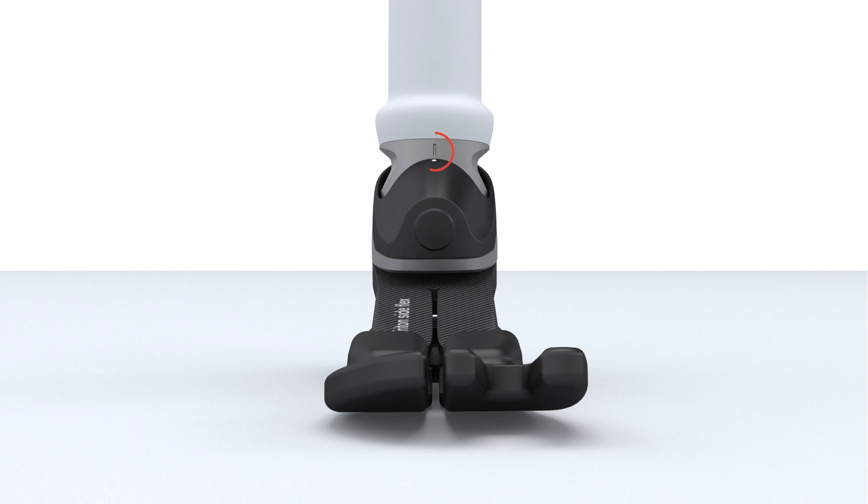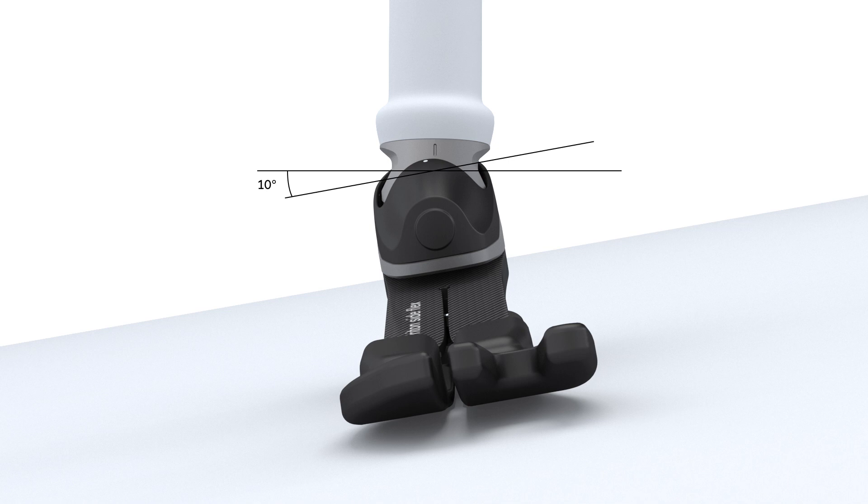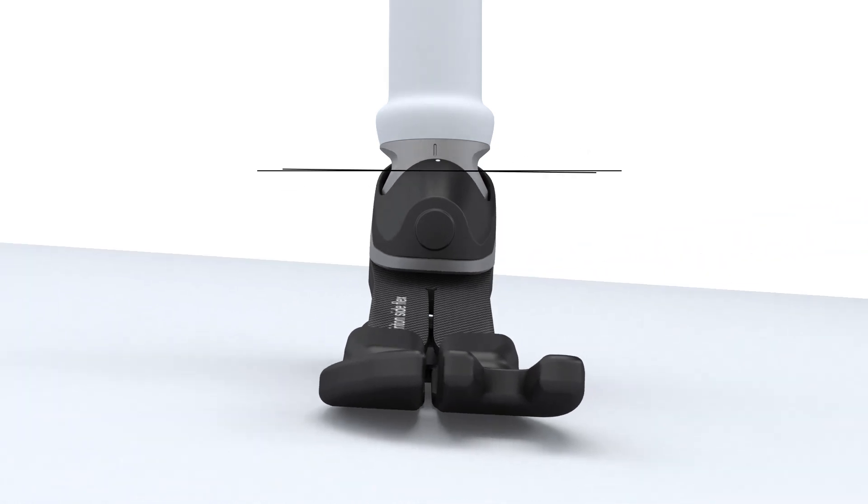It is the first prosthetic foot that provides such a high degree of controlled and easy ML motion and adapts quickly to the current situation.